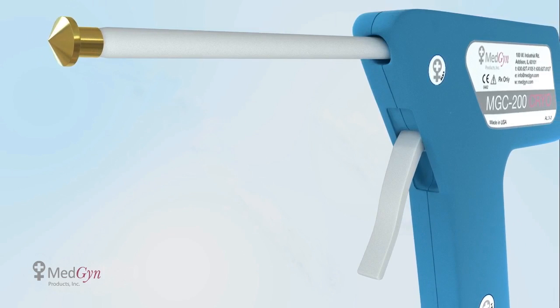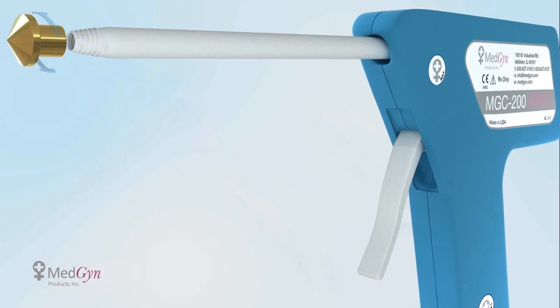Preparing MedGyne's cryotherapy system is simple. Before you start the procedure, hand-tighten the selected tip onto the probe stem.